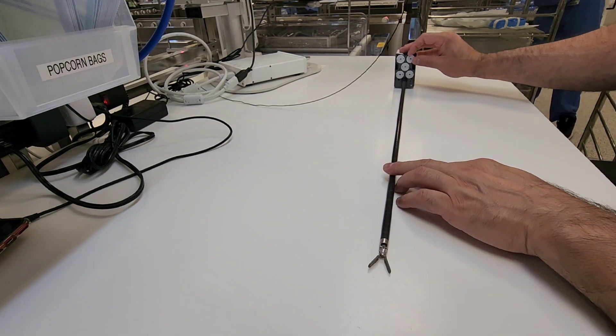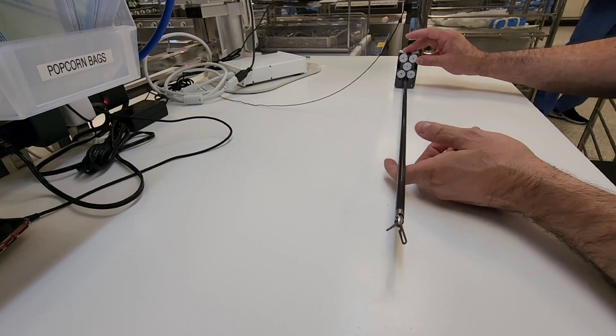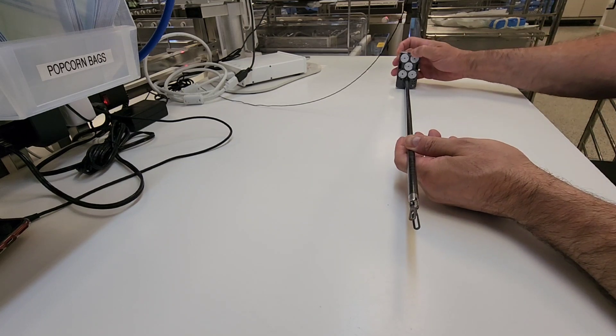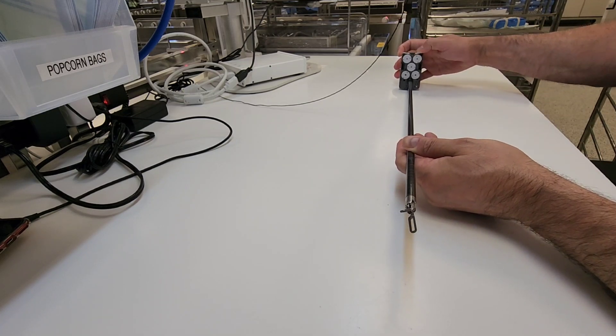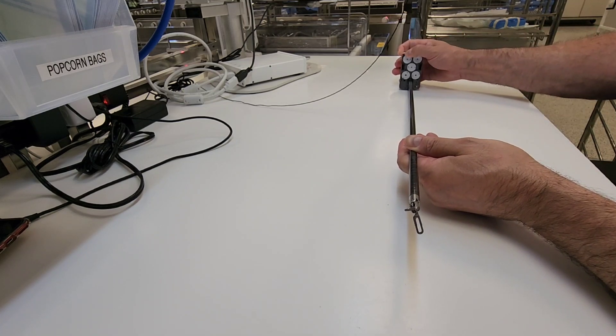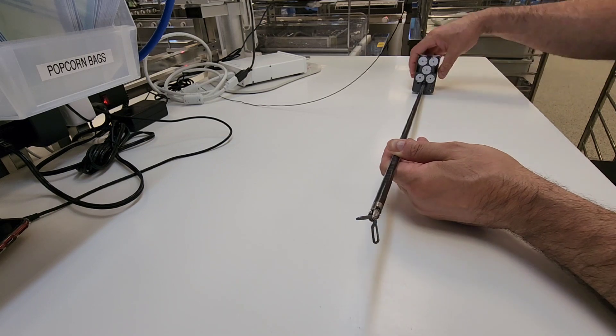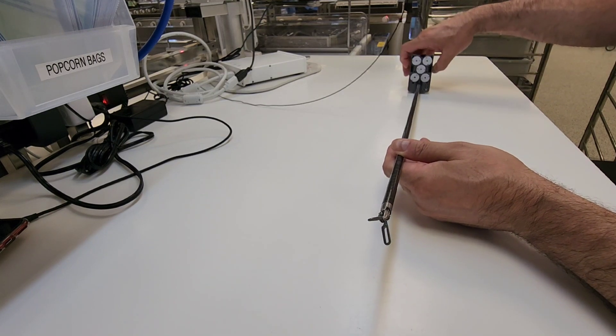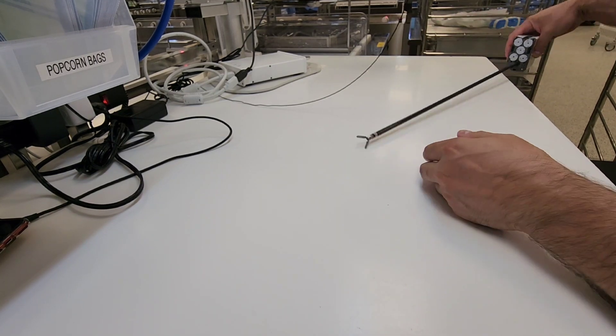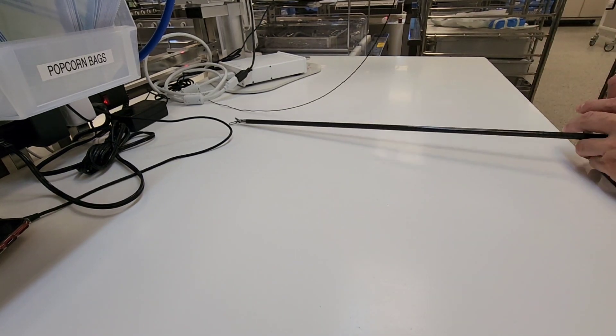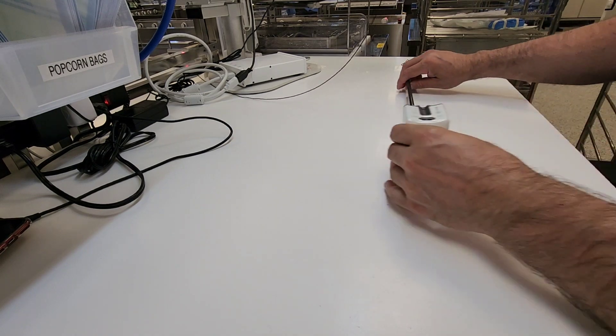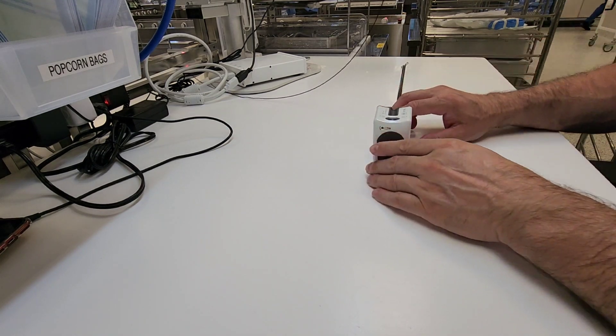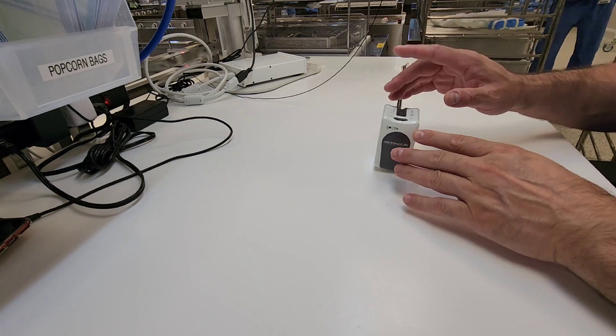Become familiar with what each one is, because if you're tracking your arms then you should be tracking how many times you process this item, and the point of use will track how many times it's used on its system.